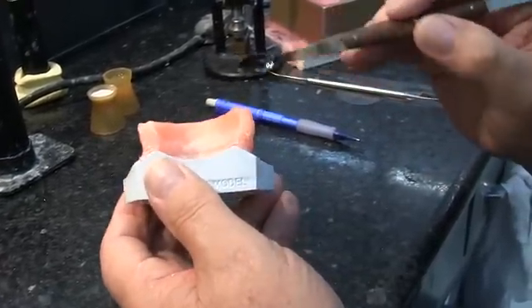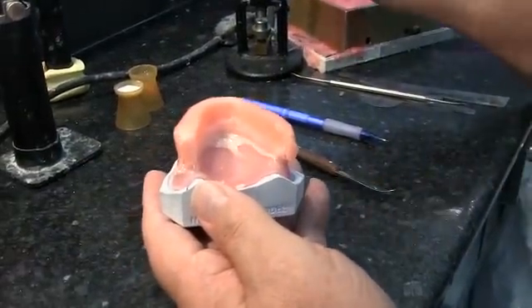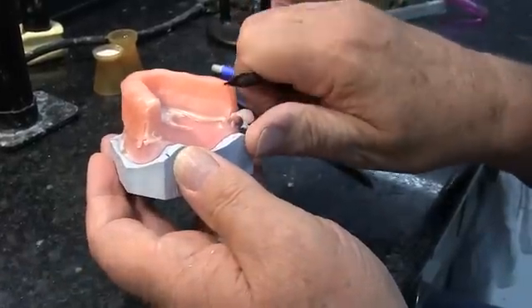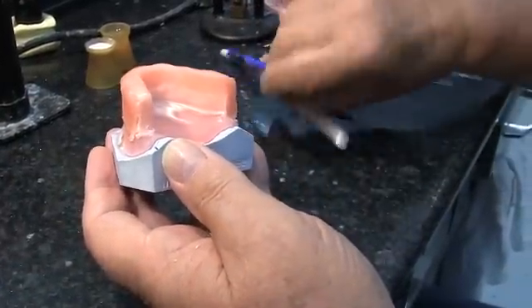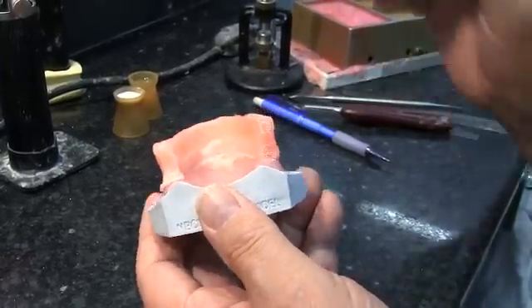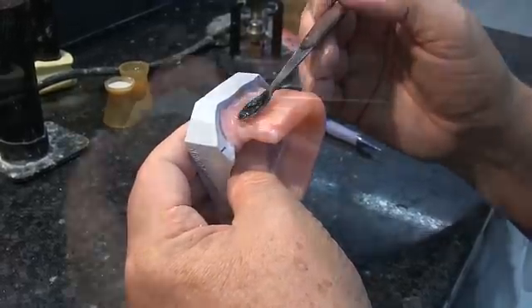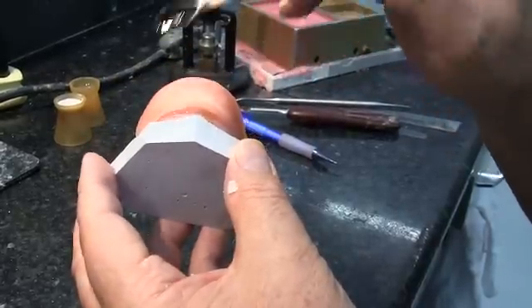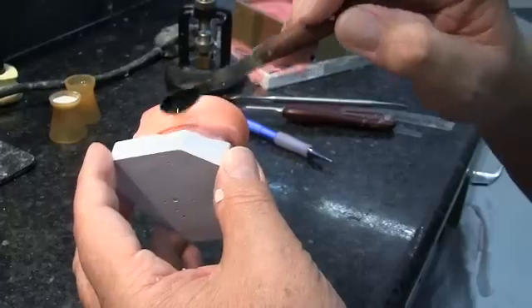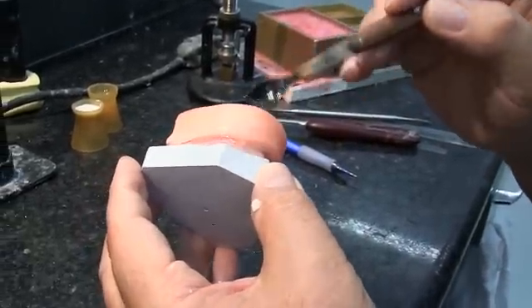When we get around on the buccal, you can let any excess wax go down towards the peripheral roll, because we want to blend all of this when we're done. I'm cutting off a little bit of the excess on that side, because that's way more than we need. On the buccal and labial, we're just going to let the excess wax stay on the baseplate and blend it towards the peripheral roll.